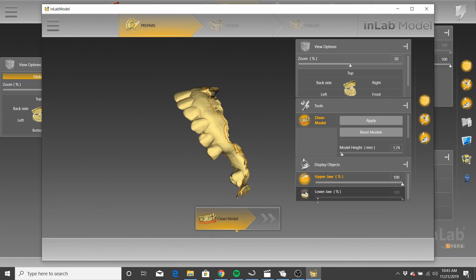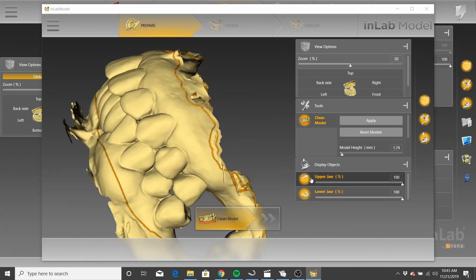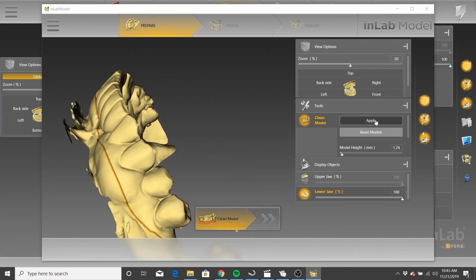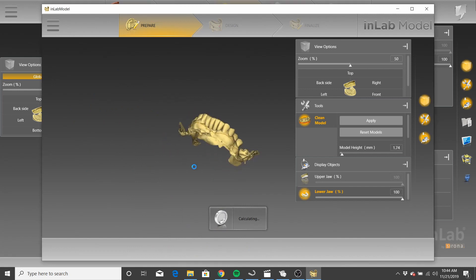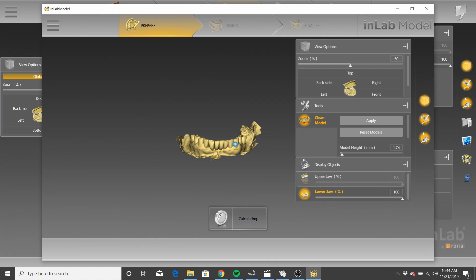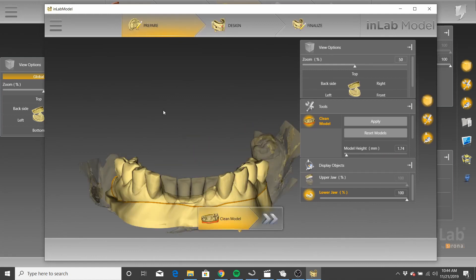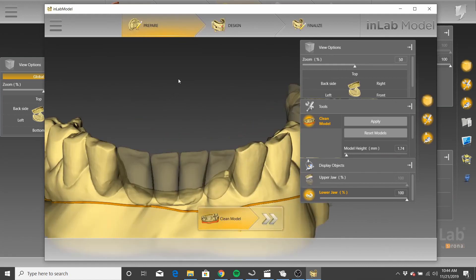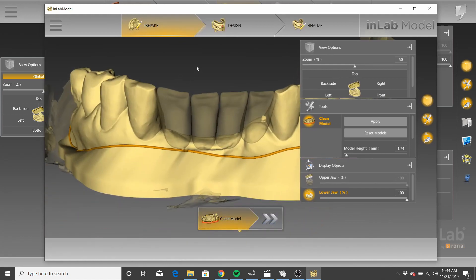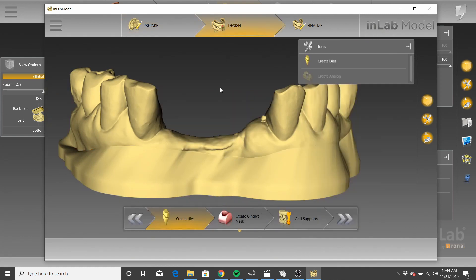Now, I'm going to fast forward through this because this can take a long time. And you've got your model. You move into the design, and they're gone. Where'd they go?